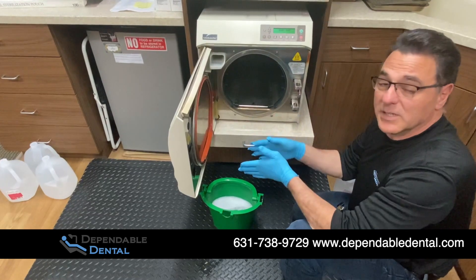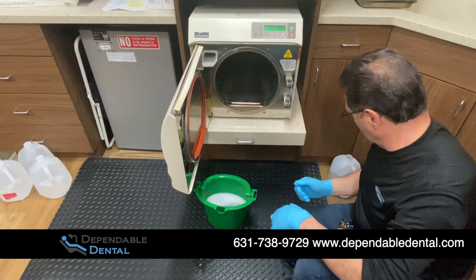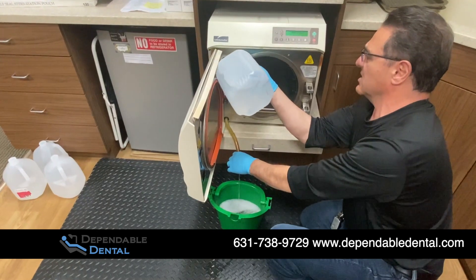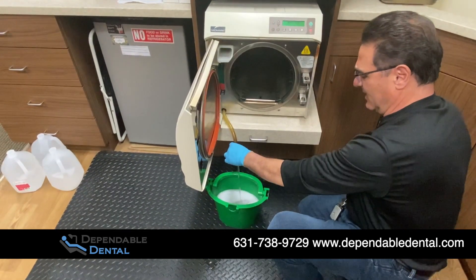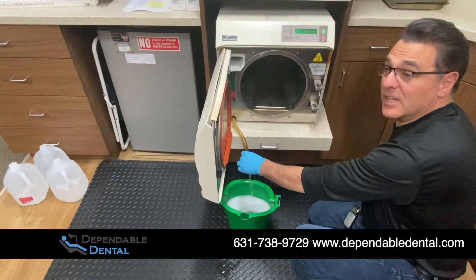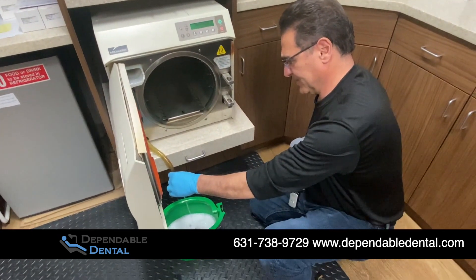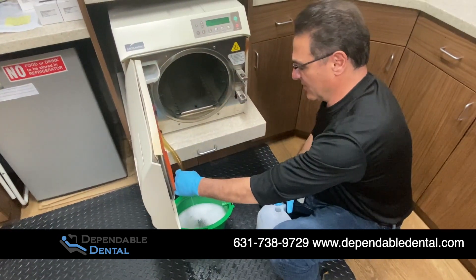Typically, you'd have to put the tray in because it's long, then turn it over and get the other side clean. Before I fill it up, I'm going to let a little water run through the reservoir — in one end and out the other — just so that we get a quick little rinse before the rinse cycle. You can actually see some of the sediment coming out.